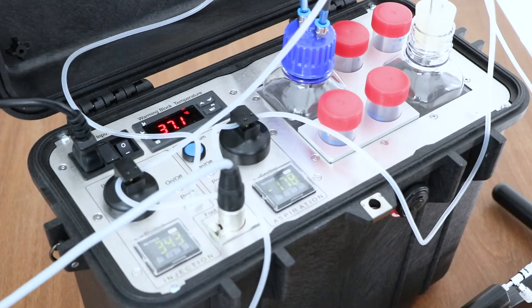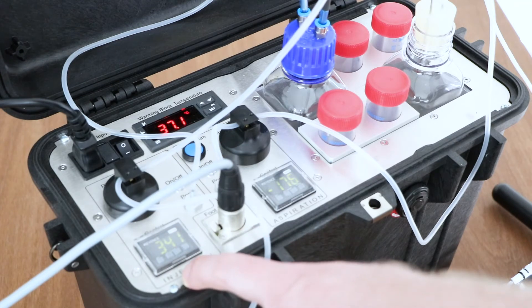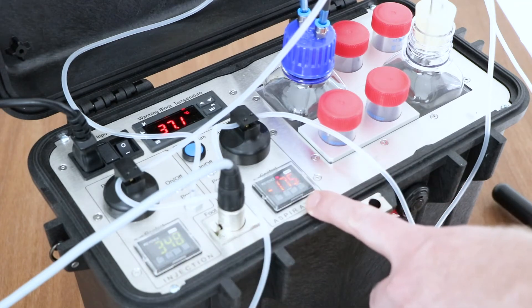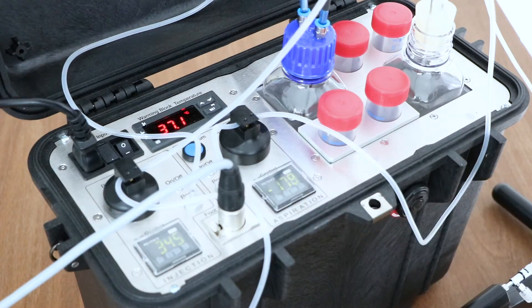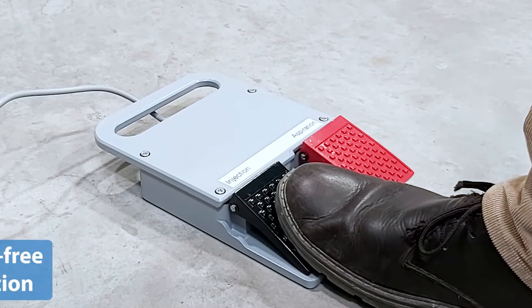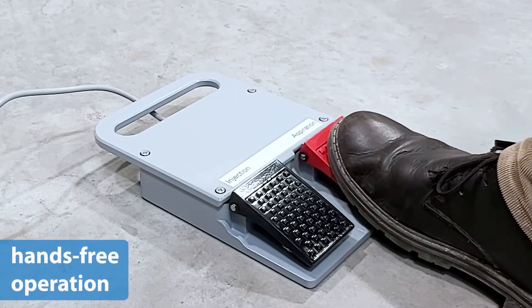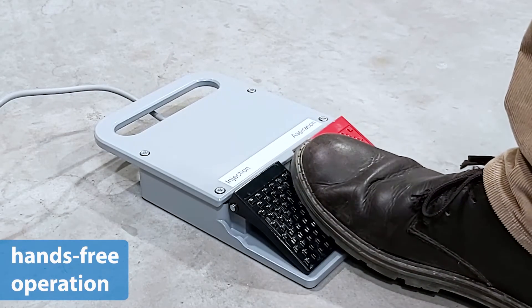The pump has an injection port for bringing medium into the follicle and an aspiration port for retrieving the medium including oocytes from follicles. These ports are controlled by a foot switch leaving your hands free. Simultaneous injection and aspiration are possible.